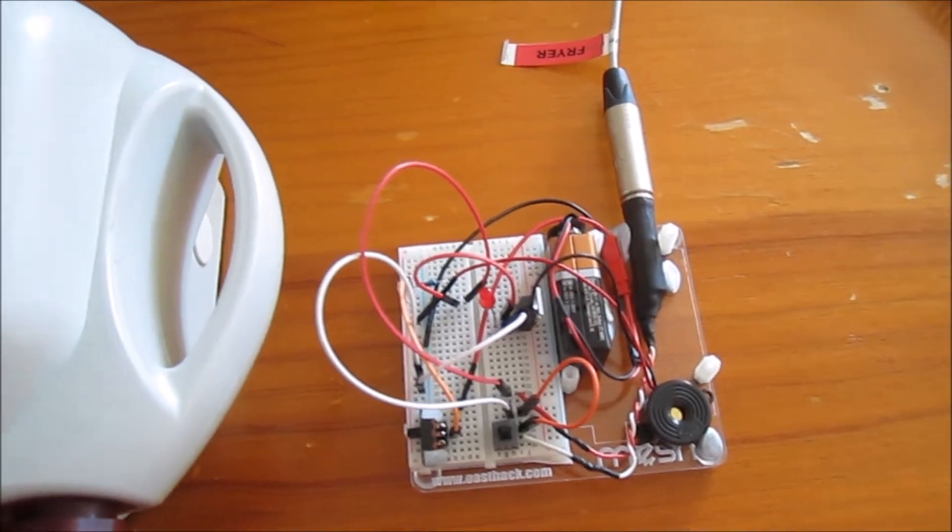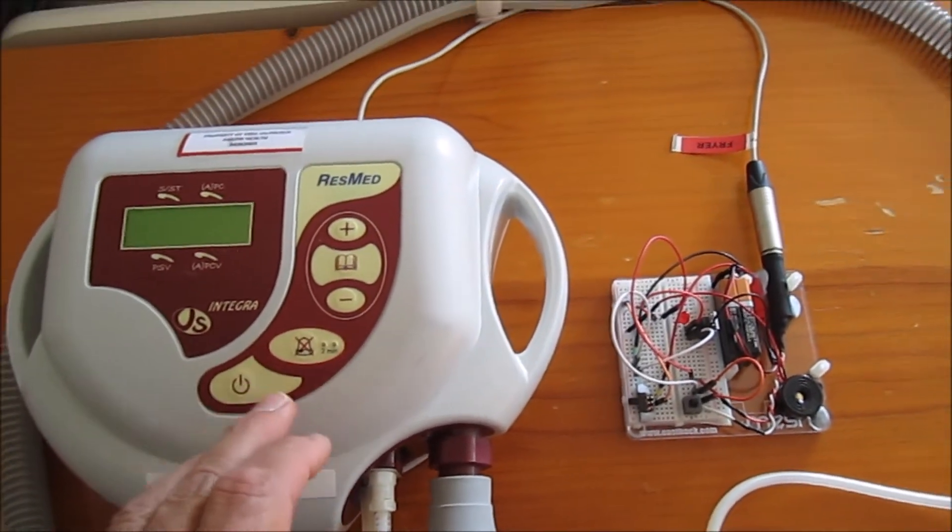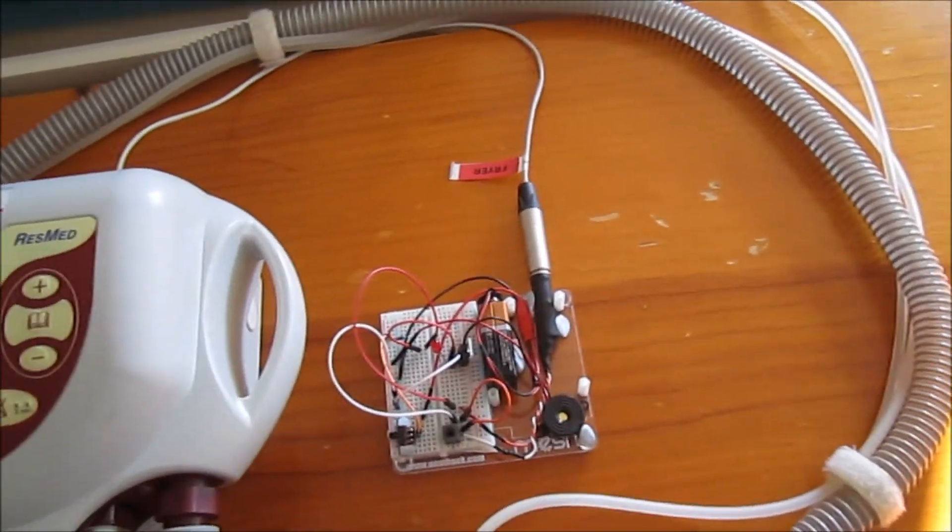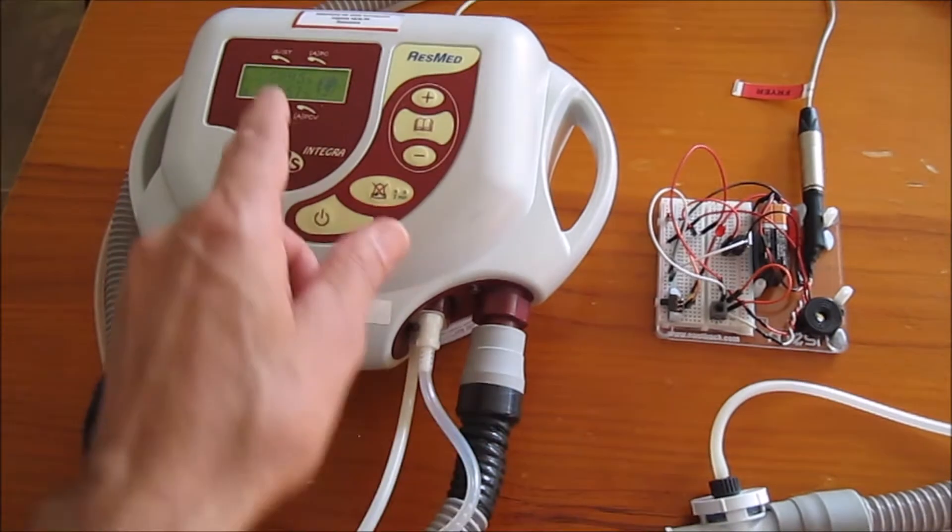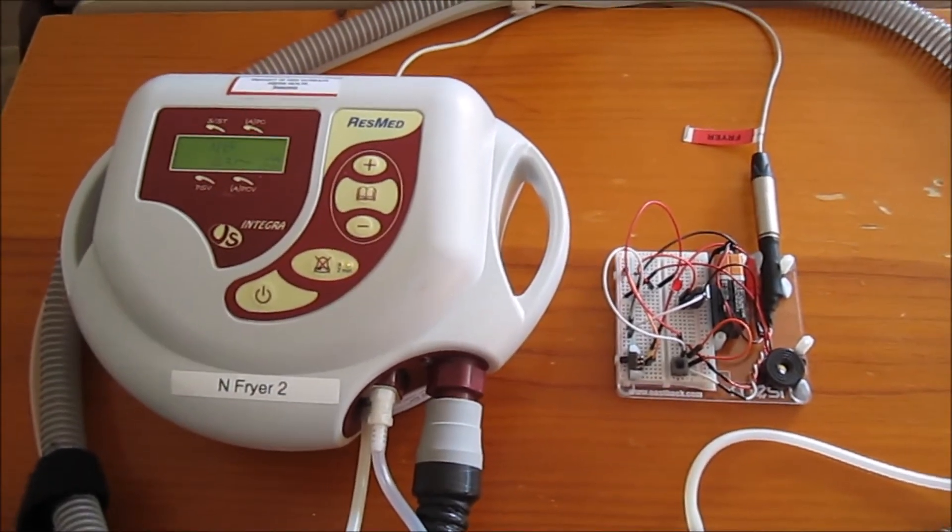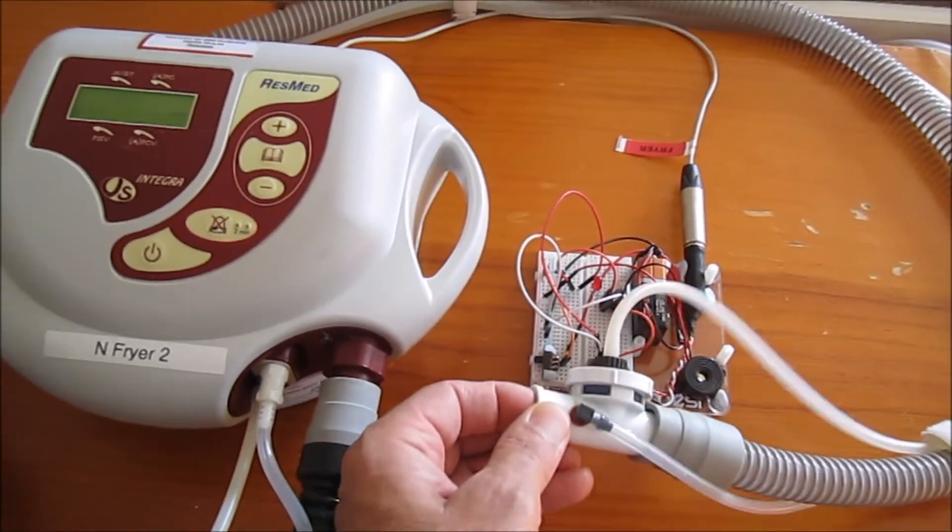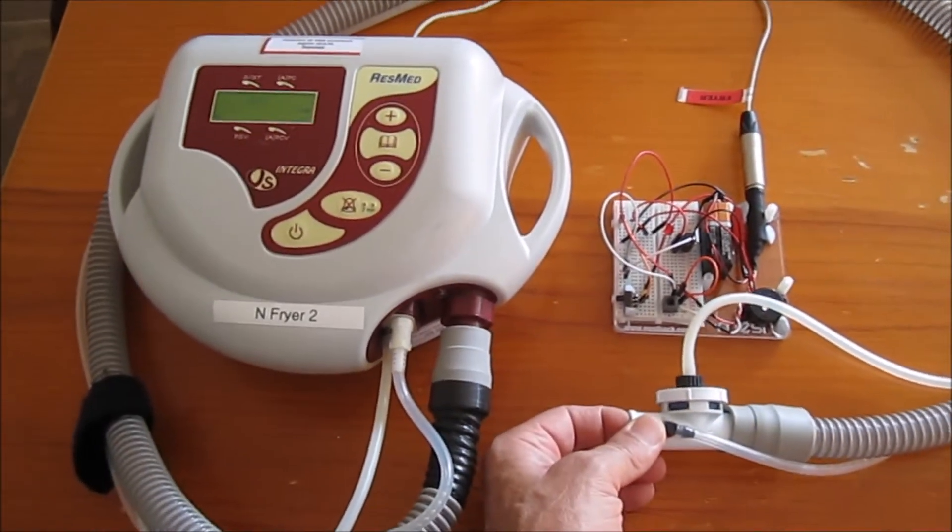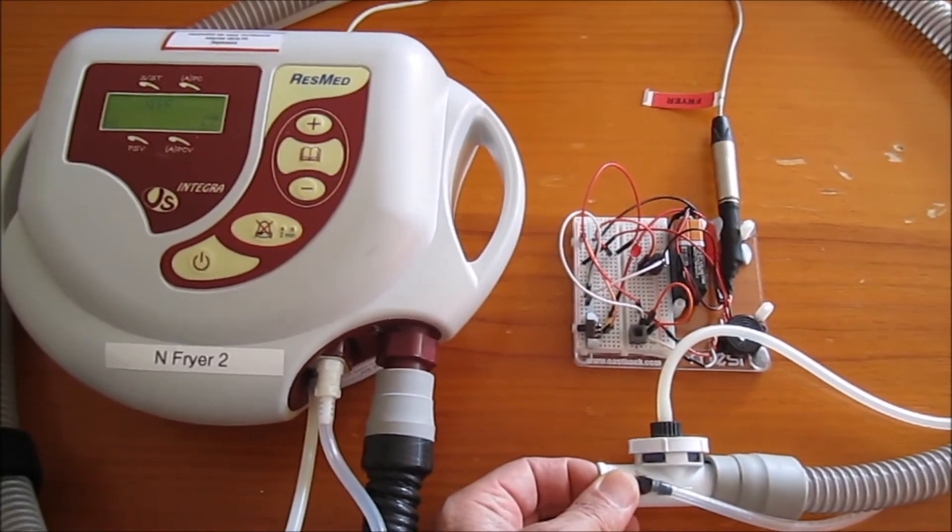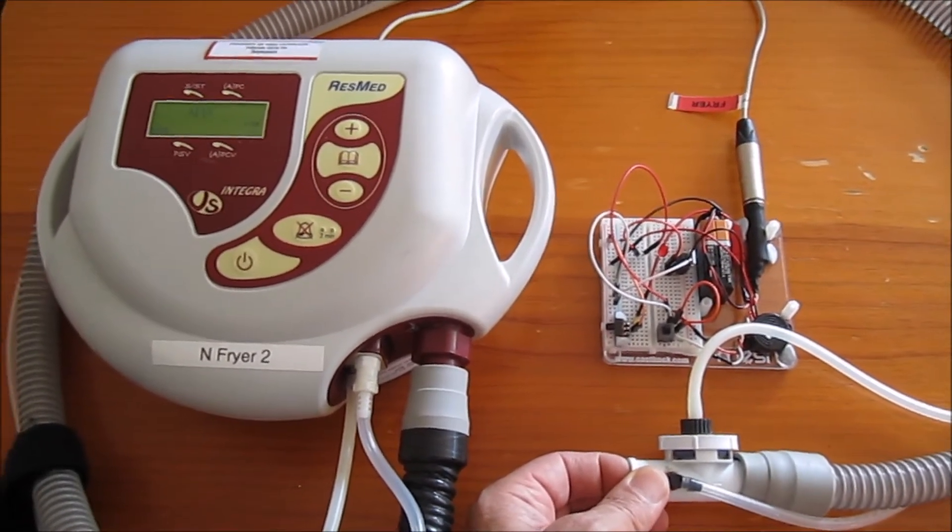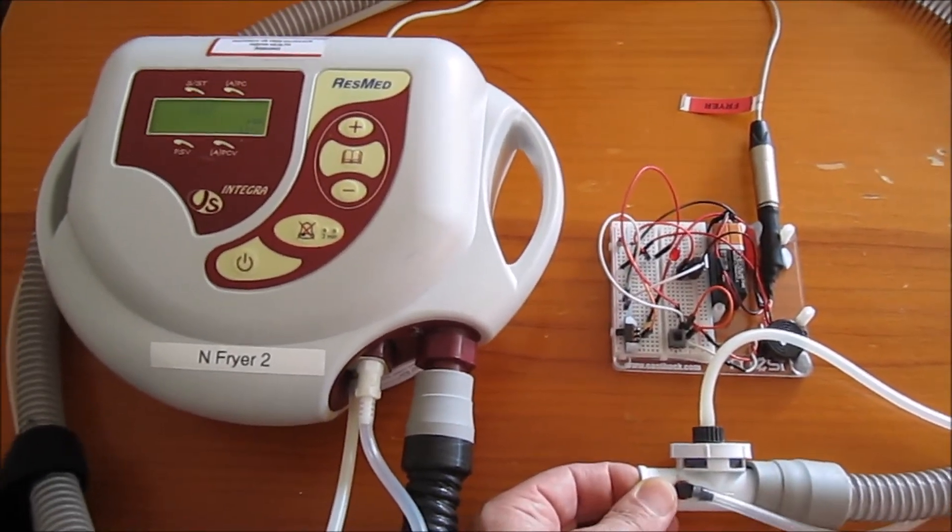I turn my ventilator back on. I can test my alarm with a little button again. Ventilator starting up, reset the alarm. This is going to be much better than our other alarm system that relied on a closed circuit function. We'll get this built with some bits coming and change over to it.